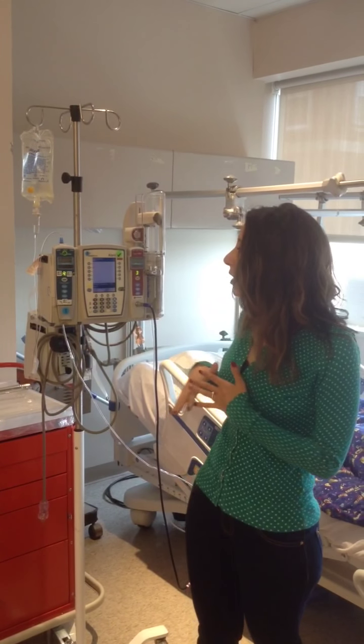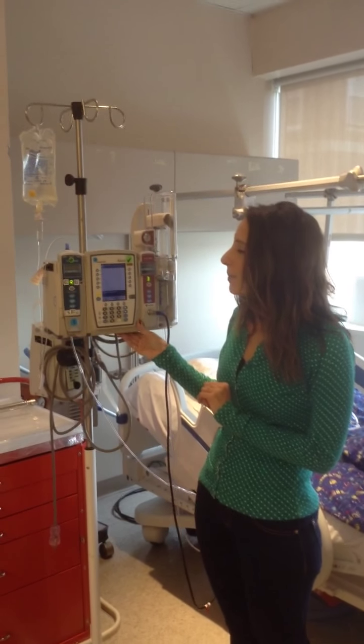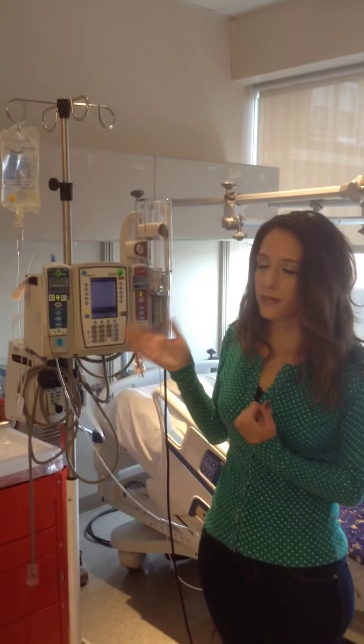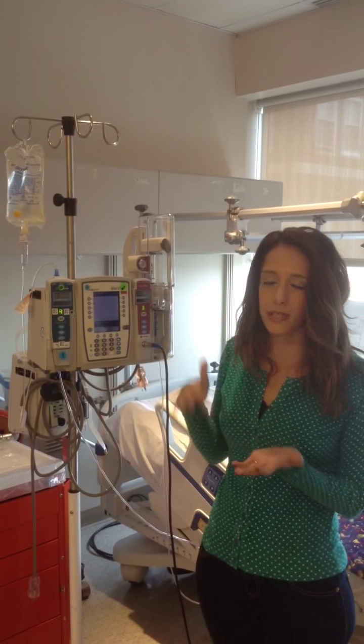So in this module, our flipped classroom, we're going to be talking about the Alaris pump. I'm going to be going over a high-risk medication that we spoke about, which is heparin. Obviously, if you administer heparin too quickly or too slowly, there can be a lot of repercussions. That's why Alaris has developed a pump with something called guardrails, and we'll go into detail more about that as we go through the pump.